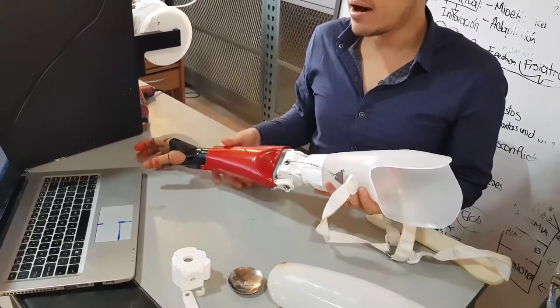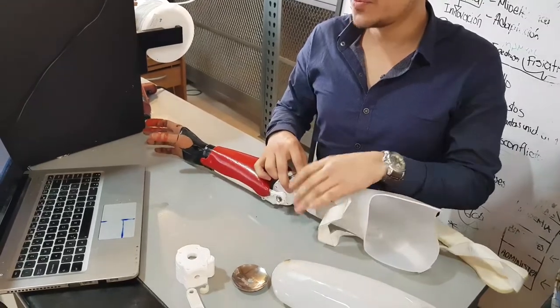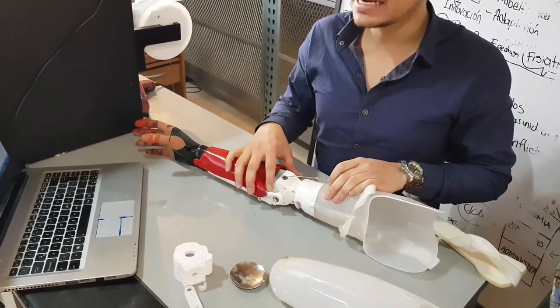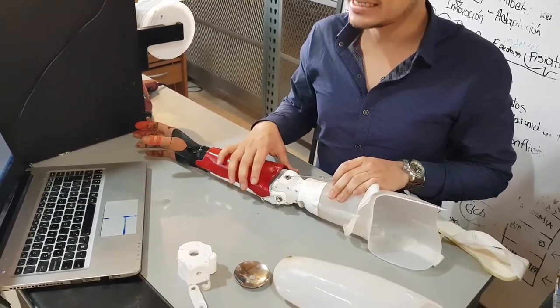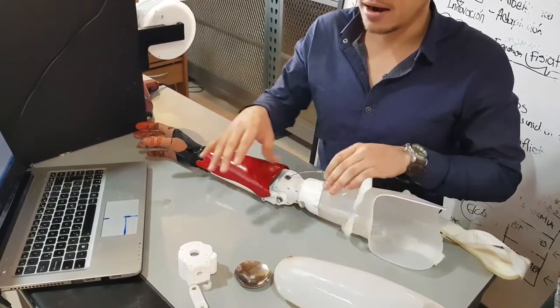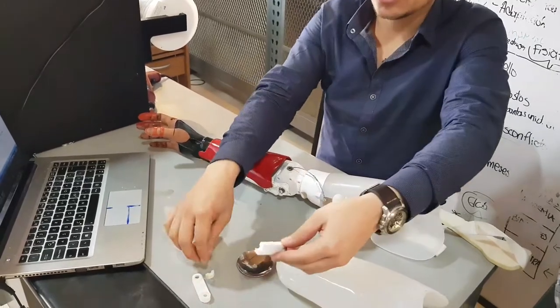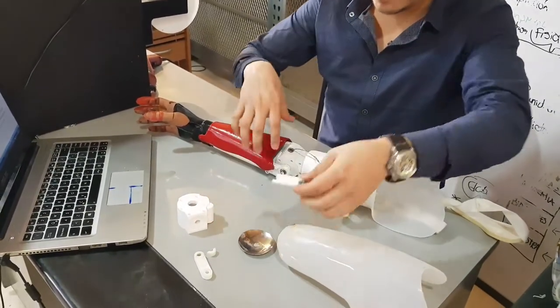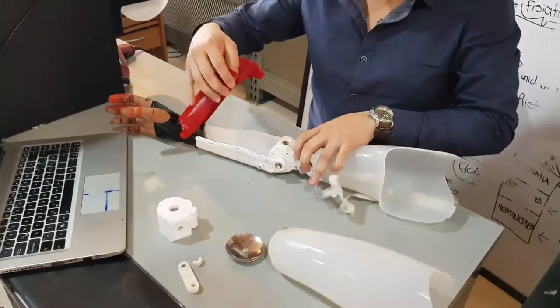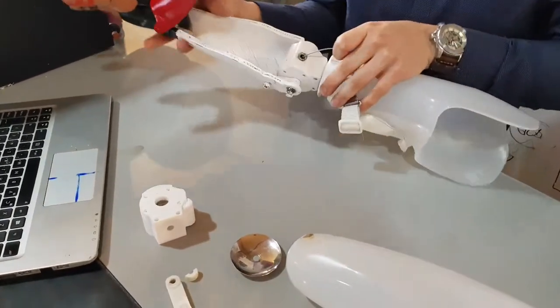The elbow has a bar that must be 3D printed in a special direction to prevent shear stress and torsional stress from breaking the bar. That happens when you don't print this bar in an appropriate direction. This is the bar I'm talking about.